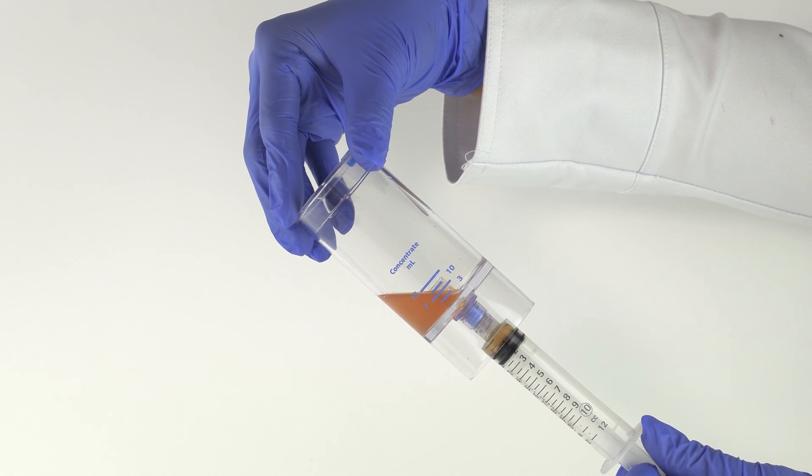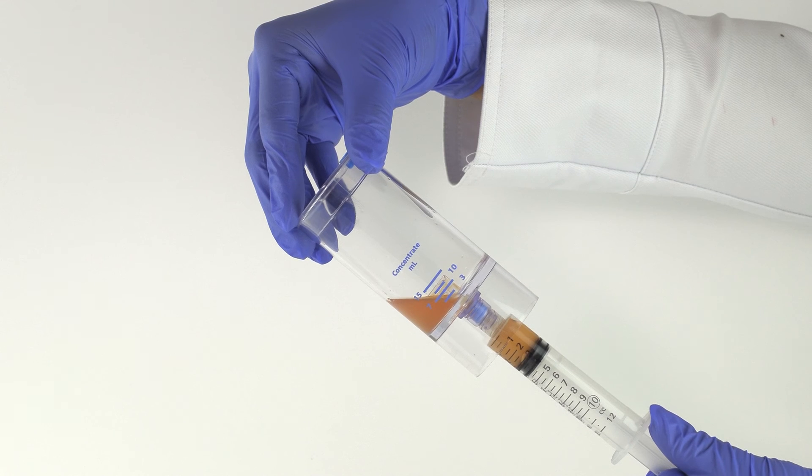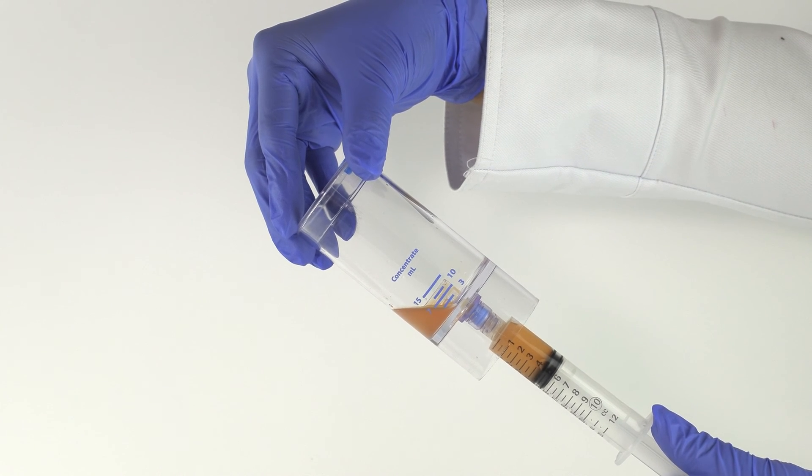Attach the 12 milliliter syringe to the needleless port and tilt the device to aspirate the PRP.